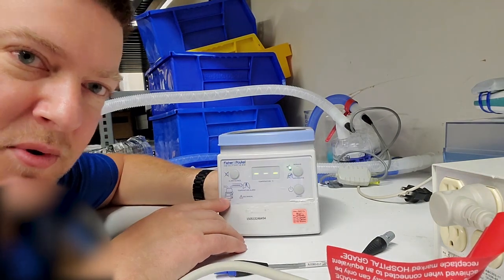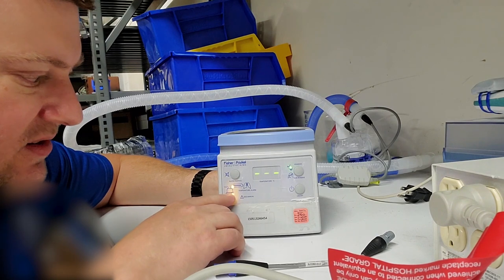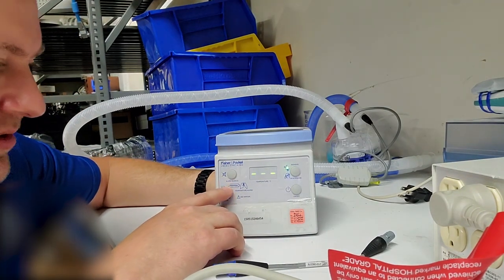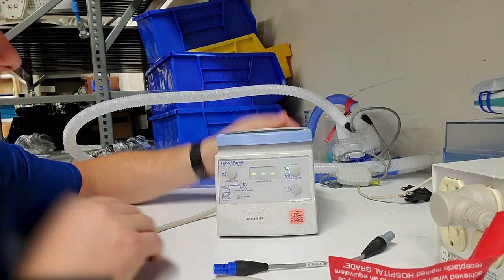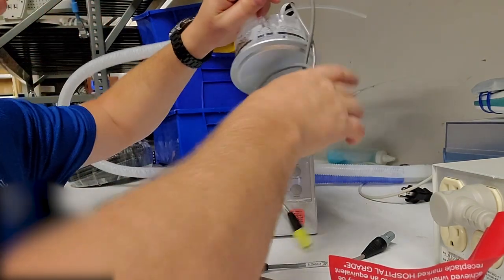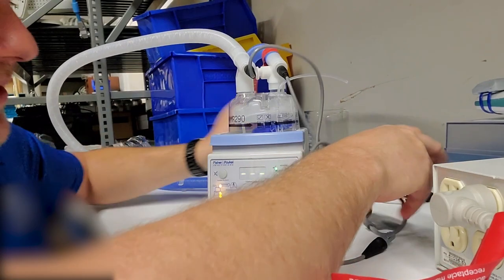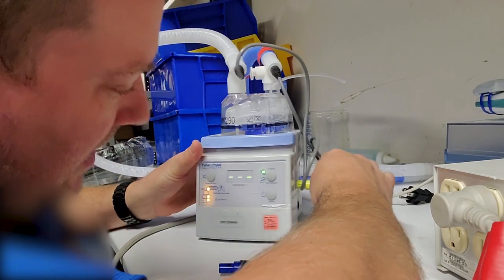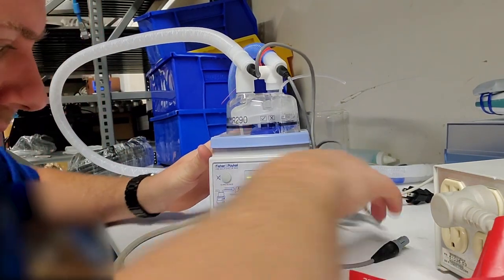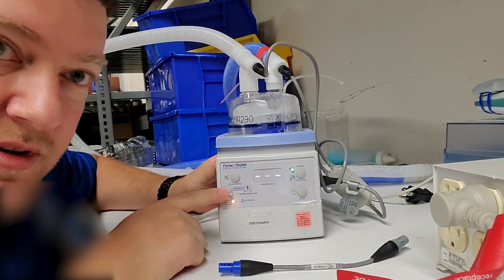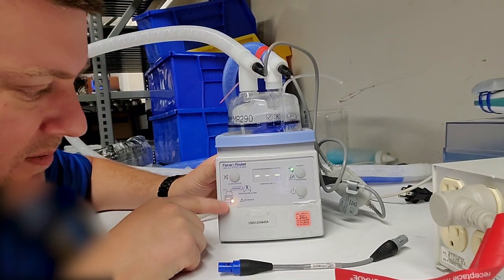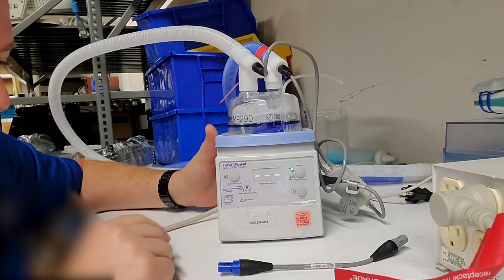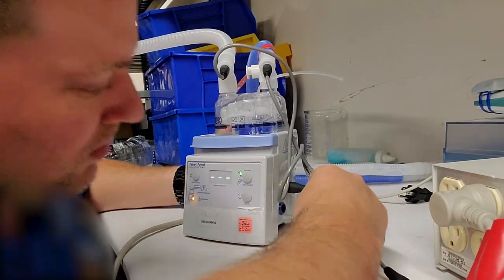Now it's actually got a cool little diagram over here. You can see that it's telling you to plug in your ports and it's also telling you that it's looking for the heating element on your respiratory circuit. So I'm going to go ahead and plug this guy in so you can see what happens. You can see as I plugged in the heating element, that part went away. Now it's looking for a temperature sensor—you can see it right there—so I will plug in the gray.